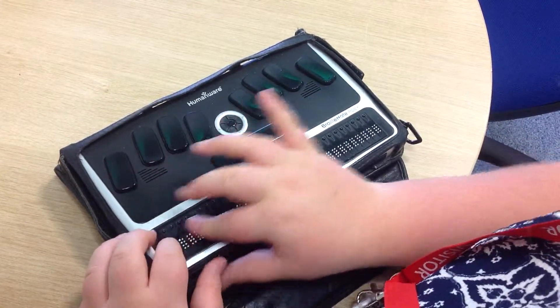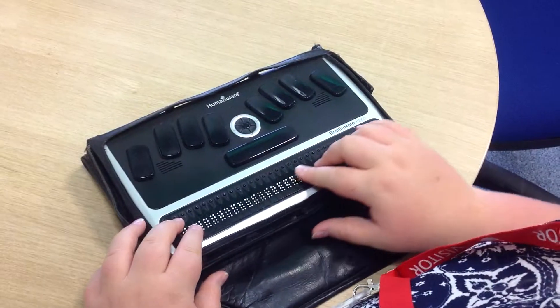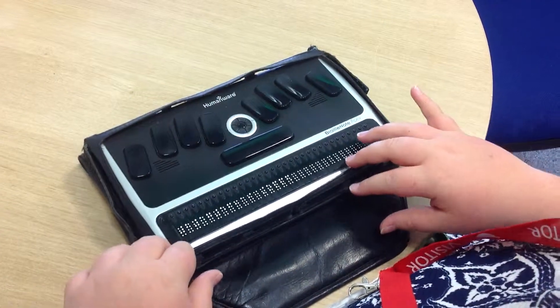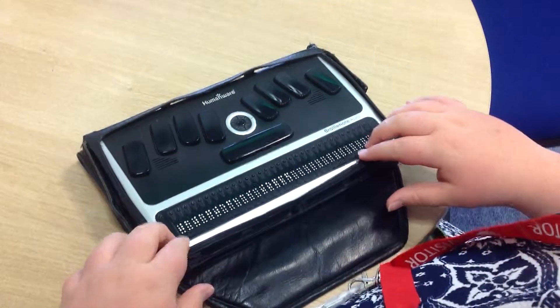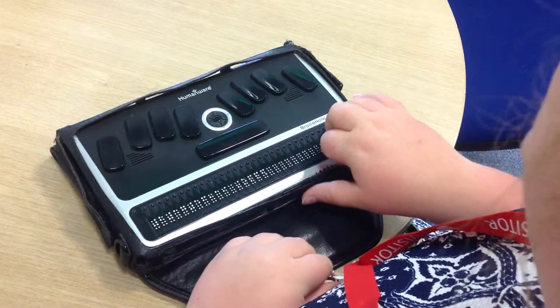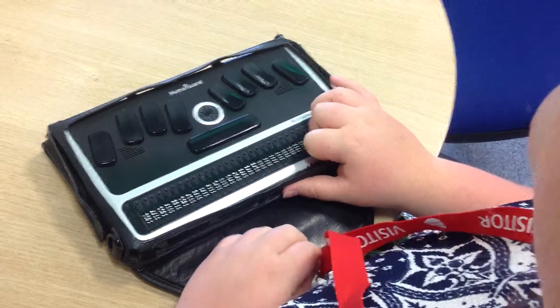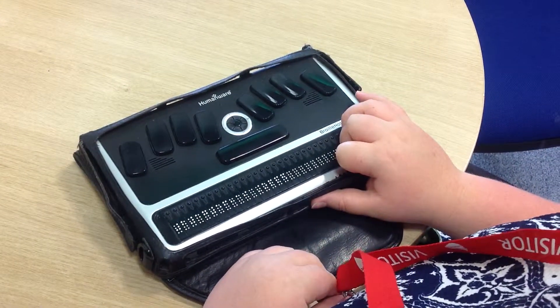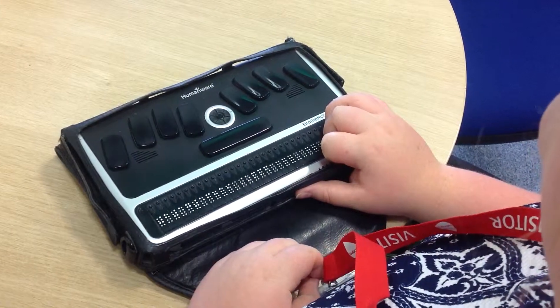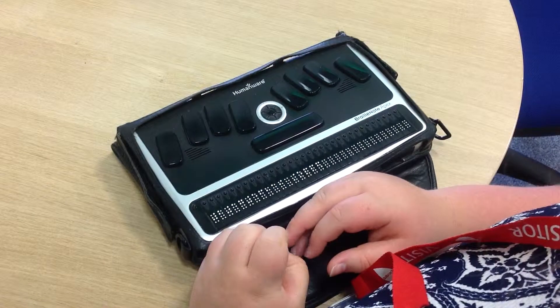It's called a refreshable braille display. And that enables when you're typing or scrolling — whatever you might be doing on the braille note — the braille will pop up on this bottom of the screen. So it's like a braille computer screen, except you can't see it in print. It just shows up in braille, which is really fantastic, and it also means that you can just read what you're doing.